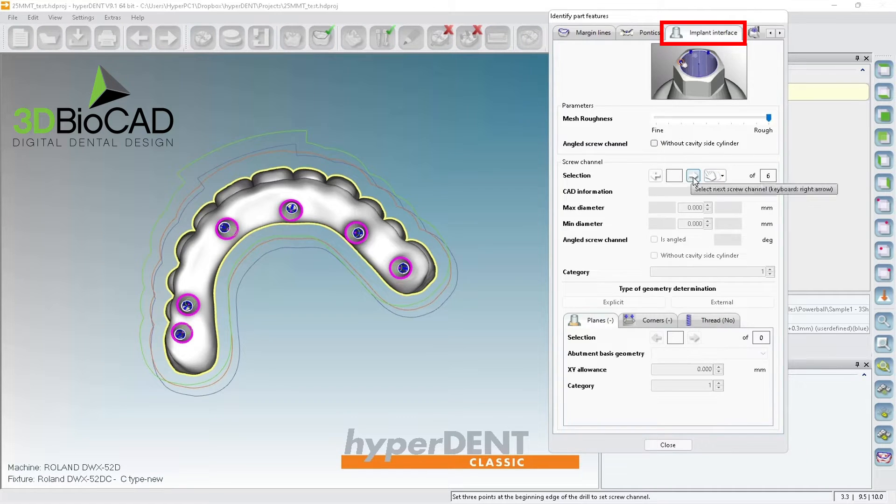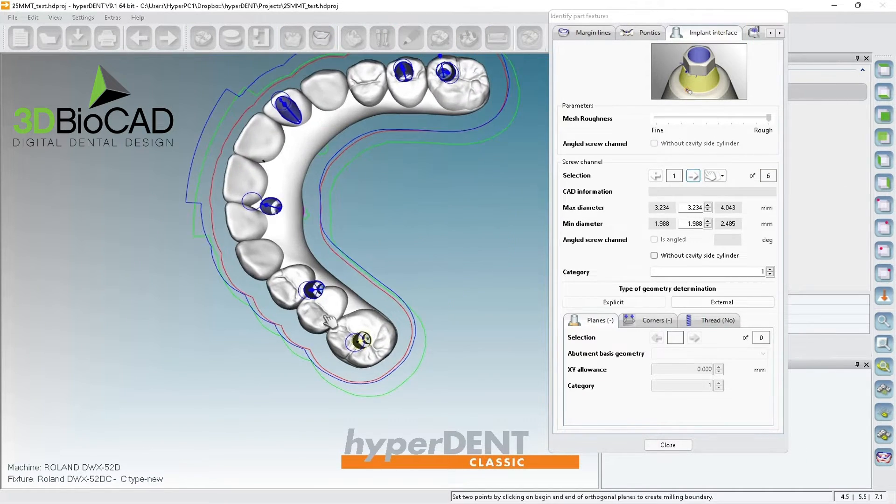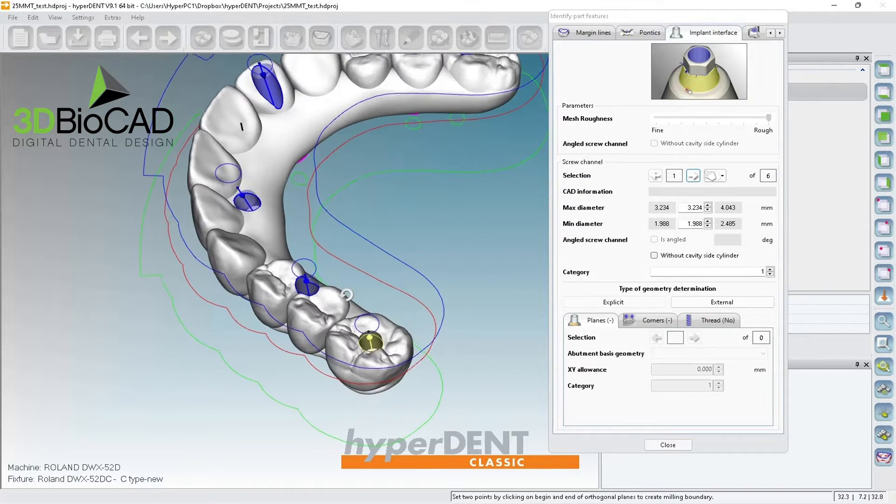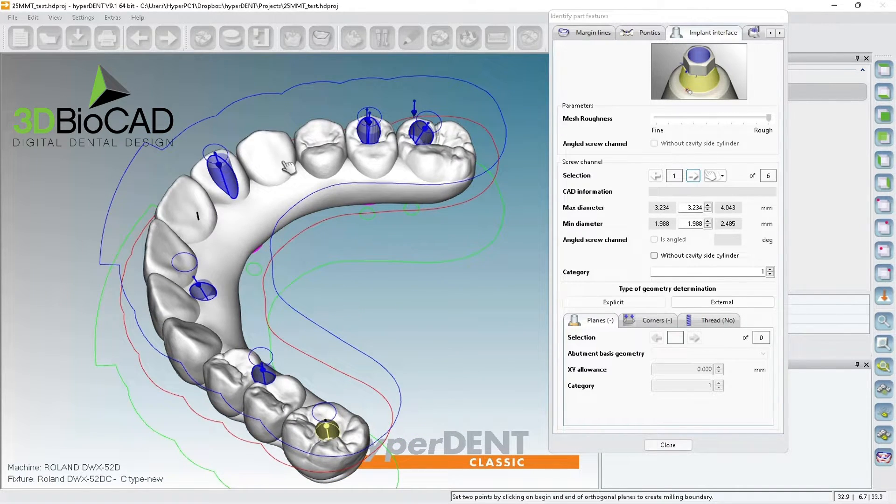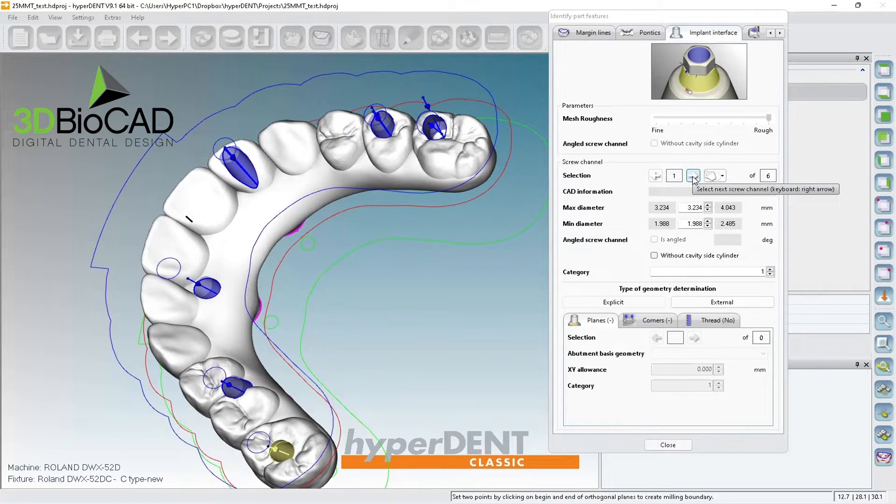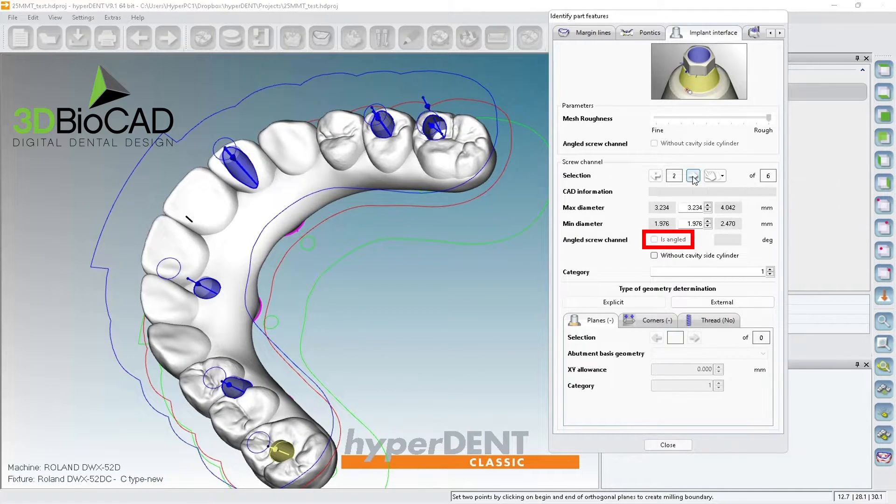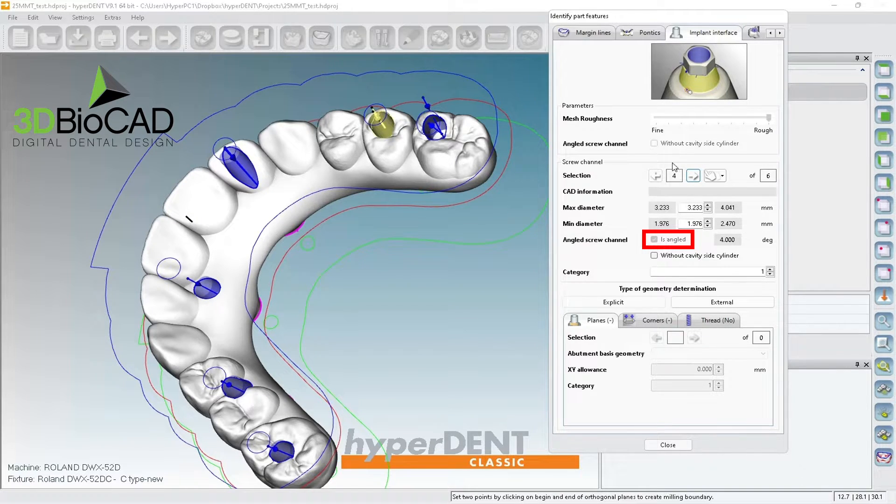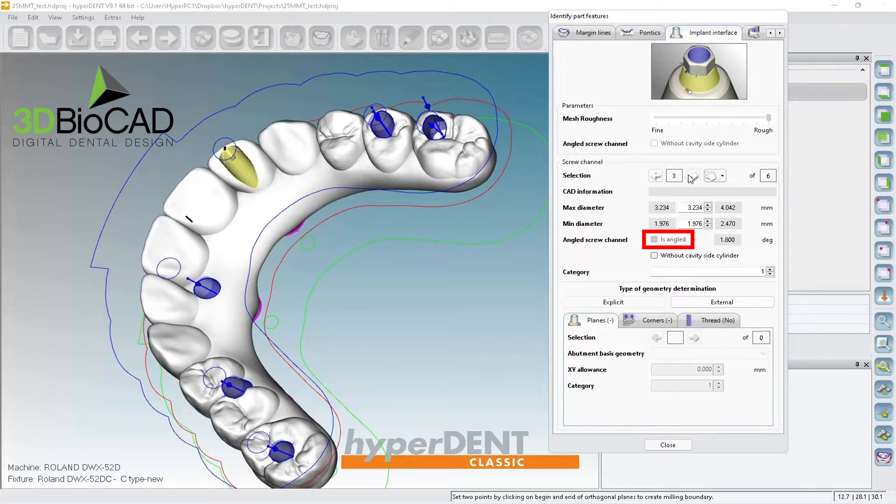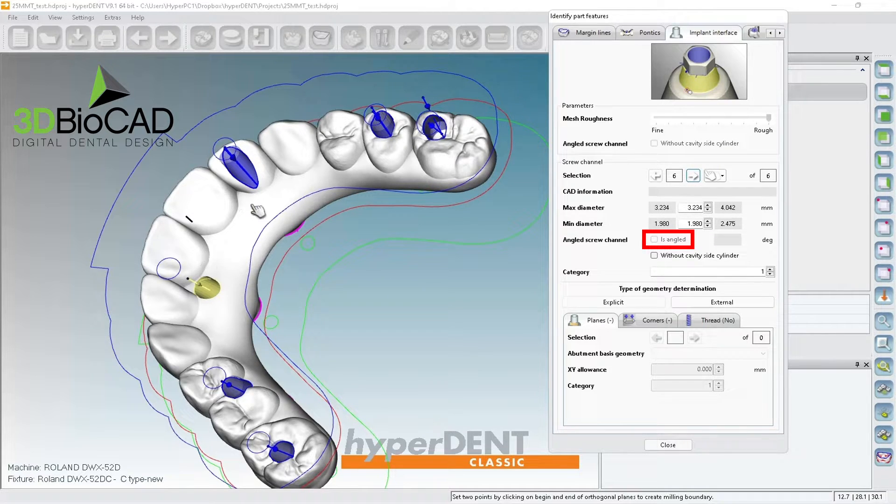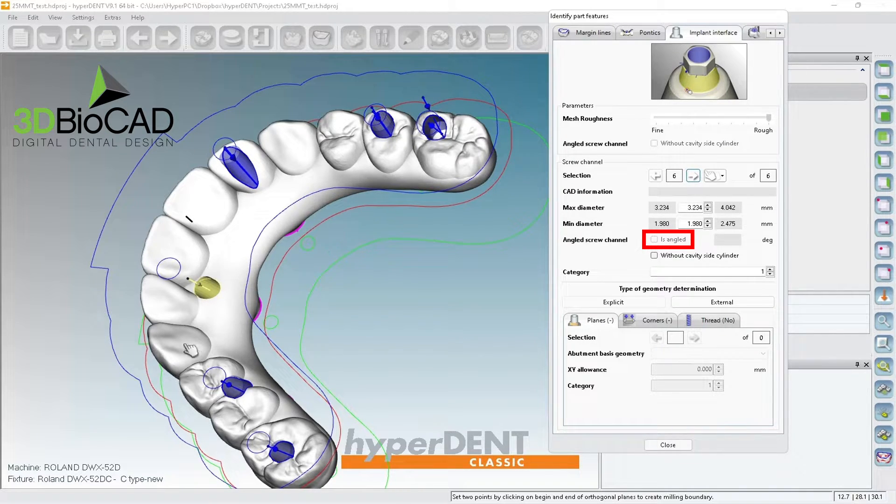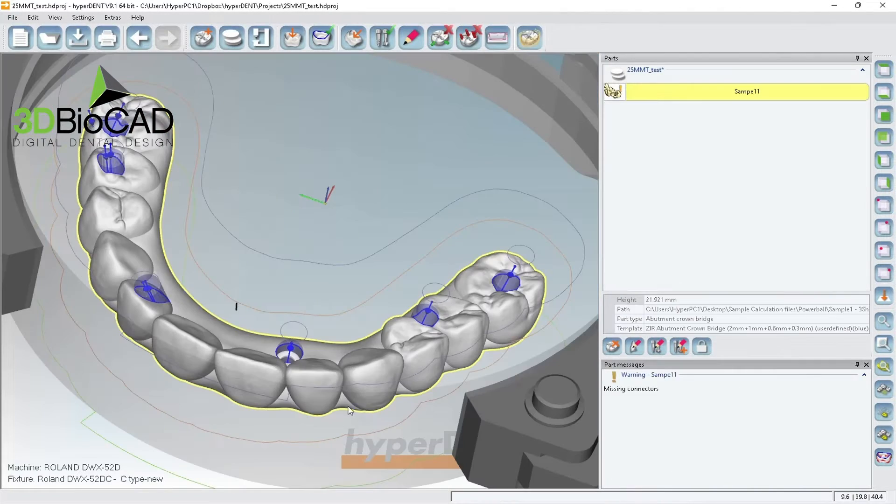And if you go to implant interface, you also have six channels. And within six, just looking at this drawing, so this is straight channel, straight channel, straight channel, angle, angle, angle. So we probably have three angles. Straight, straight, straight. Oh, actually no. Oh yeah. So angled, angled, angled, and straight. So these threes are angled and these threes are straight. So don't forget, we have to do the second step.